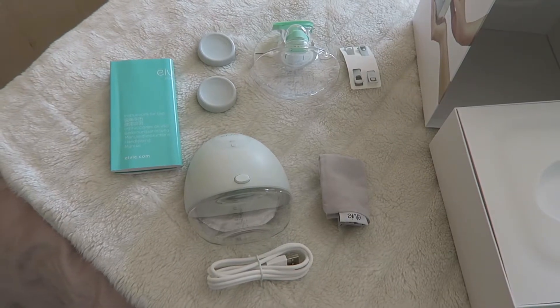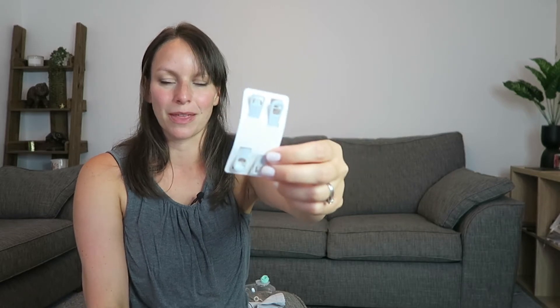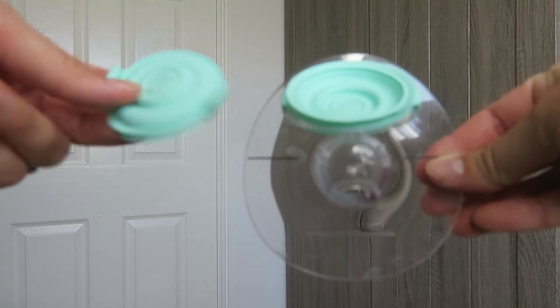So if you just buy one, you get quite a lot of pieces with it. You get one main unit, two bottles that have two of the sort of plastic bits on the top, and two of the green suctioning bits on the top as well. You then get two lids — so when you change the top, you can undo it and put a lid on instead, making it a proper container. I've used that lid quite a few times, which is actually really handy. You also get two bra strap adapters — I haven't used them because everything I wear is really stretchy right now. But you get those little adapters to make it longer, and then a bag that it comes with. You get two breast shields and the little suction pads. So everything that needs to be sterilized, you can sterilize and have one that you're using and one that's clean for next time — apart from these.